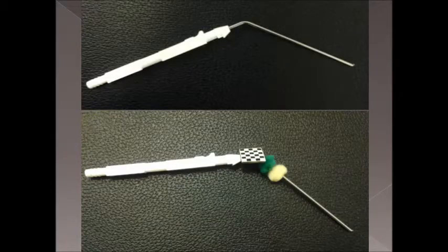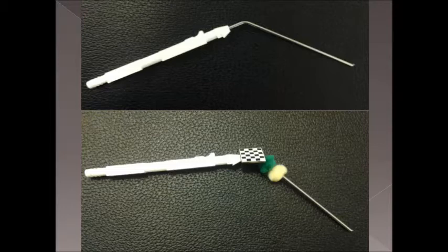Originally the Microsoft Kinect was being used to track the tool, but this has since been replaced with a simple webcam since the depth sensing camera in the Kinect did not provide the desired accuracy and couldn't be used to produce sufficient results.